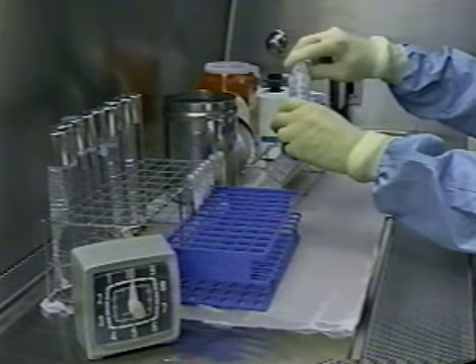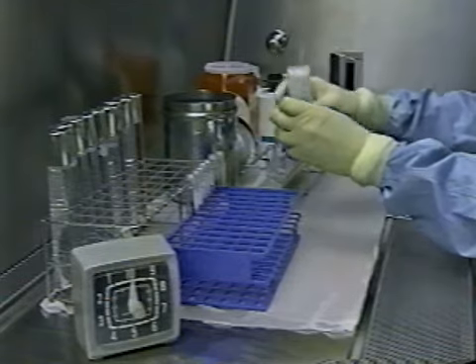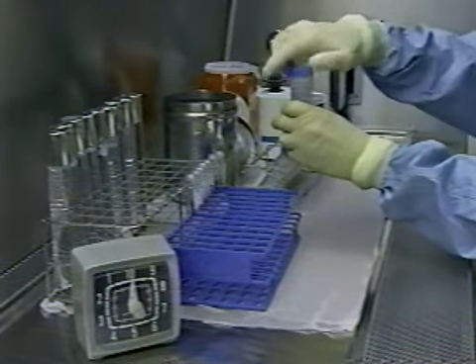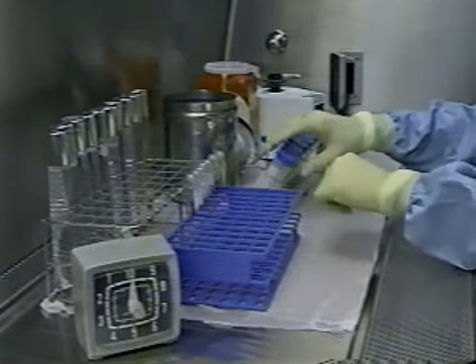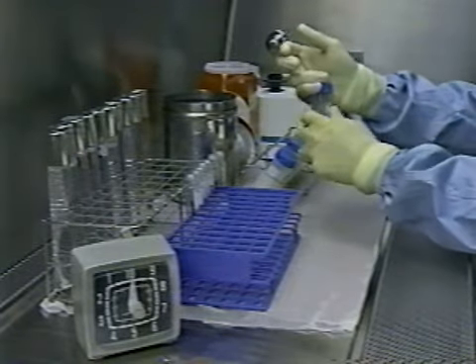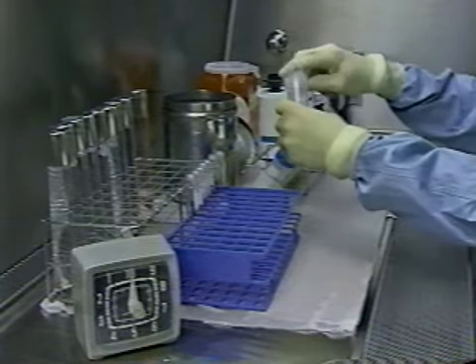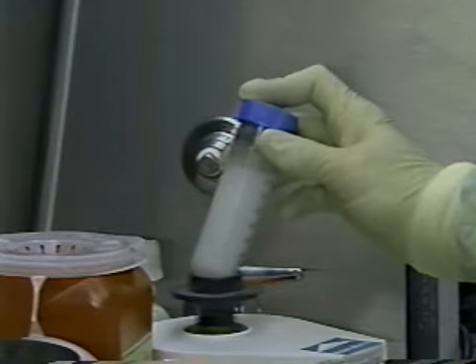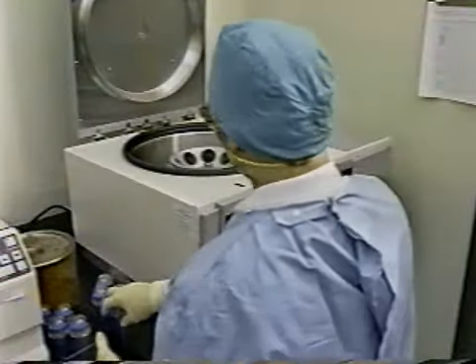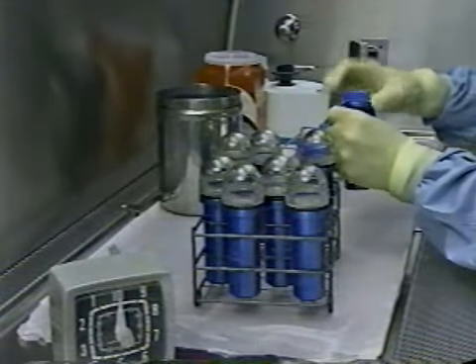The proper technique for removing the caps from tubes and adding contents from one tube to another will be demonstrated for you. Notice that only one specimen tube is open. How the cap on the specimen-containing tube is held with the interior surface kept down. How only one reagent tube is open. How the reagent is poured carefully down the side of the tube to minimize the production of aerosol. In the observation exercise, the mixing and centrifugation steps were done correctly. A vortex was used for mixing, closed safety carriers were used for centrifugation, and following centrifugation, the carriers were opened in the BSC.